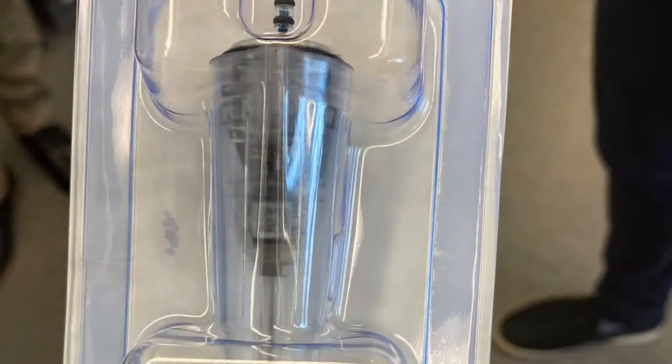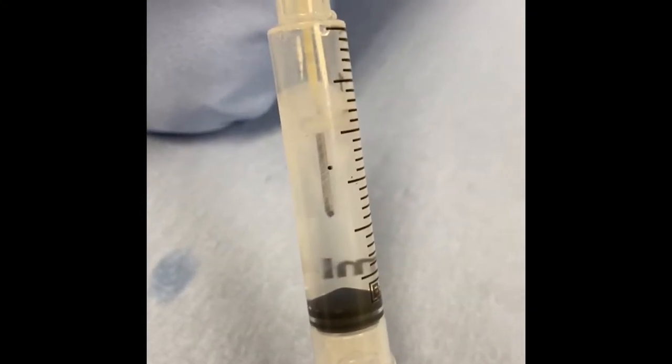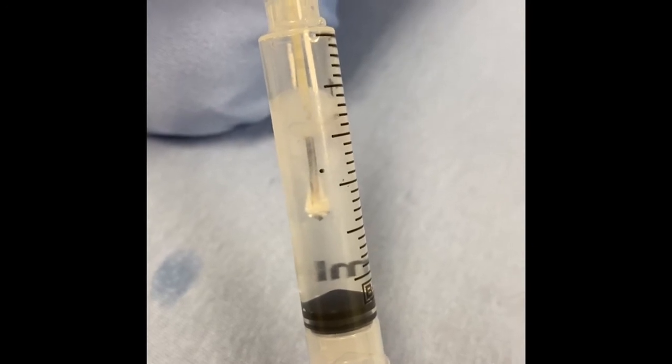You can see the electrical equipment here, and this is the length of the probe that will slide into the skin. We inject it through a 16-gauge angiocath just to help with targeting the needle as well as how it will look under ultrasound.